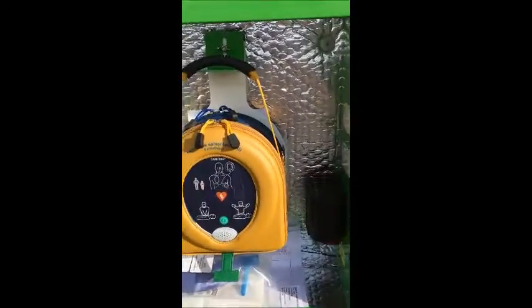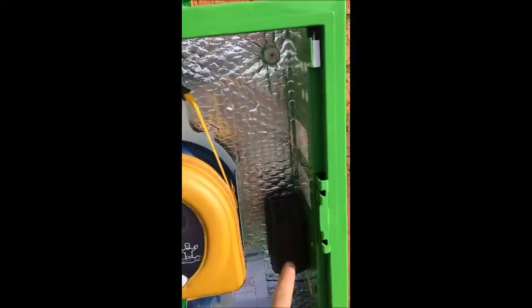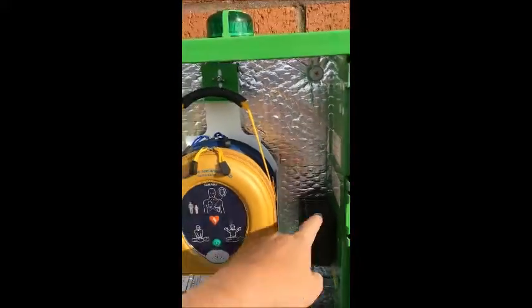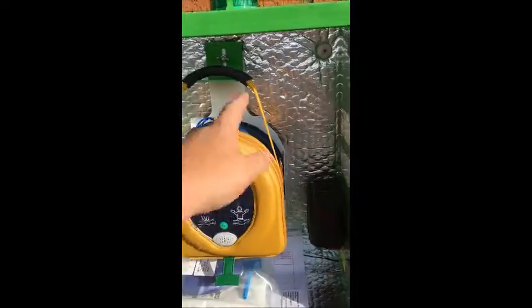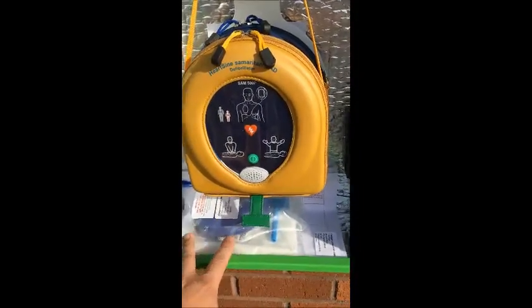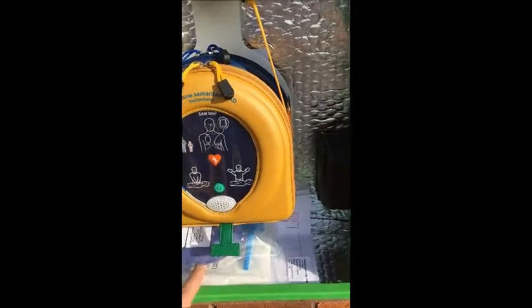The next question asks if there are any items placed on top of the heater. This is the heater in the cabinet — a small black box with a grill on the top. There should be no items placed on top of the grill; this area should be clear for the hot air from the heater to circulate around the defib and keep it warm. Any items like the resuscitation kit should be placed underneath the defib at the bottom of the cabinet.